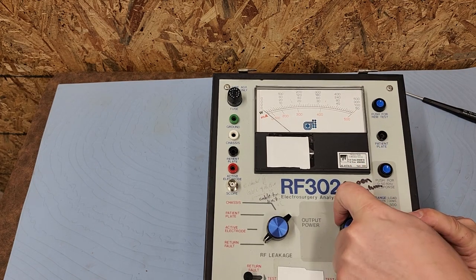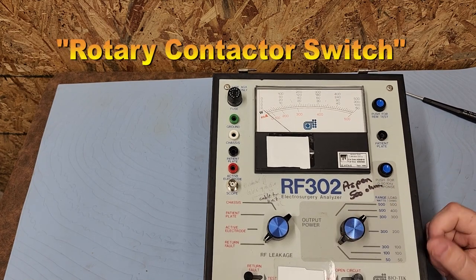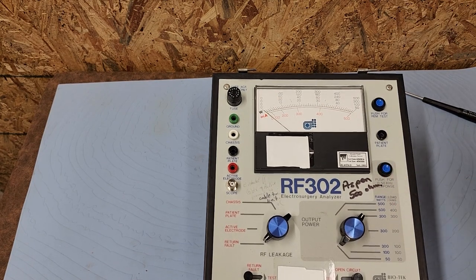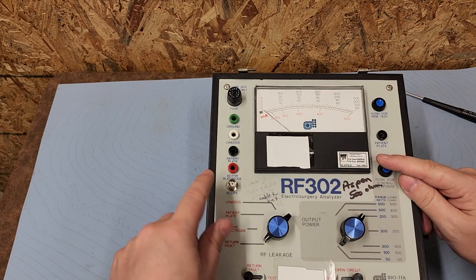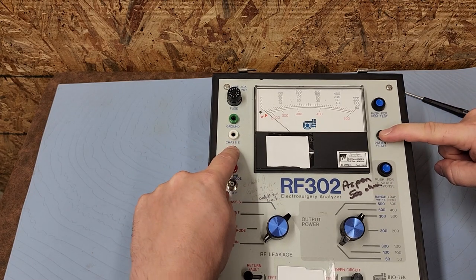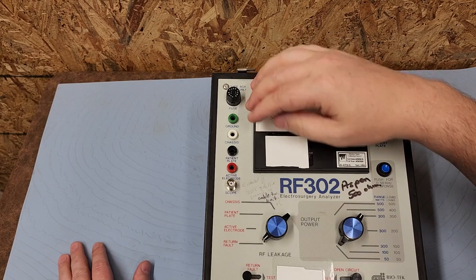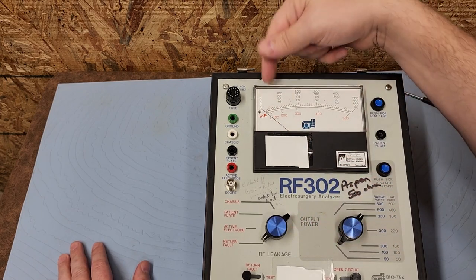300 ohms is probably going to be where most of my settings are — 300 or 100. I do like the dual-wing clickety-clacks because they're much easier to switch when you're doing a lot of tests. We also get 400, 500 unloaded, and zero to 50 kHz response — not really sure what that's for. Here's the patient return — you can see the meter is tied in here. Watts is the top scale and milliamps is the red scale at the bottom for leakage.